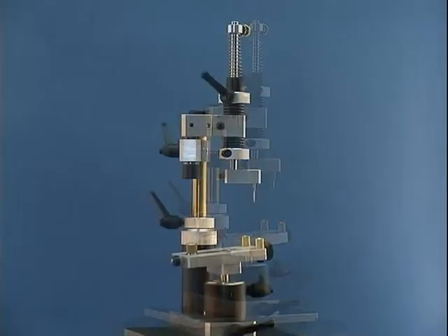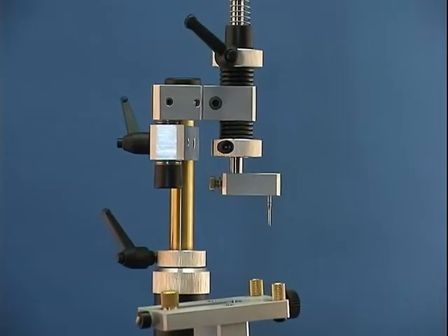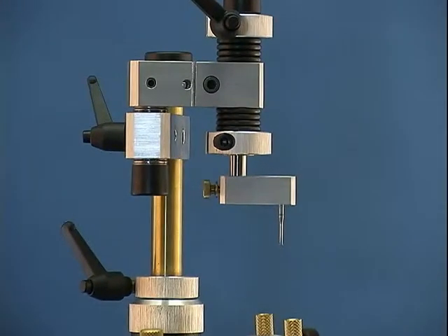The surveying tool holder also has a unique feature. You just insert the undercut tool into the holder and it's held there by spring tension. No knobs or screws to tighten.